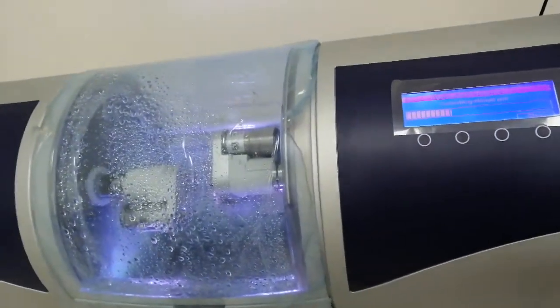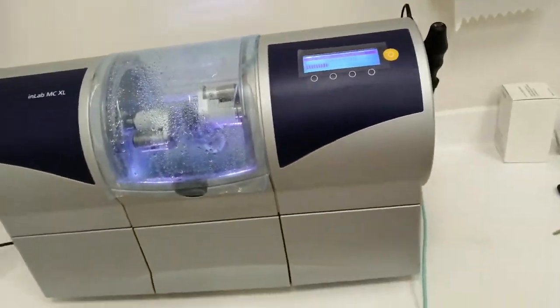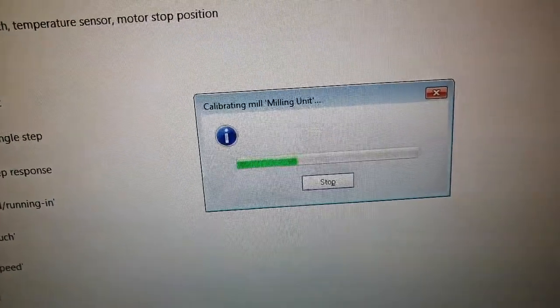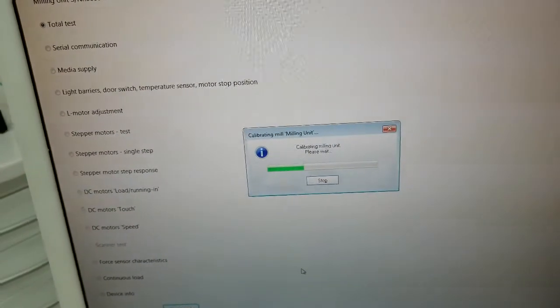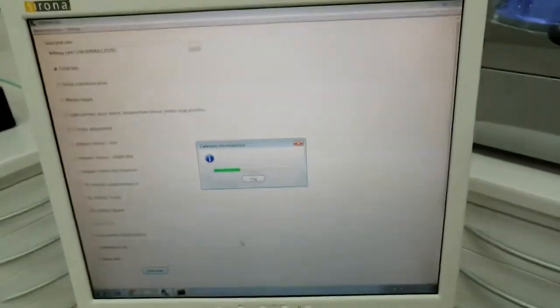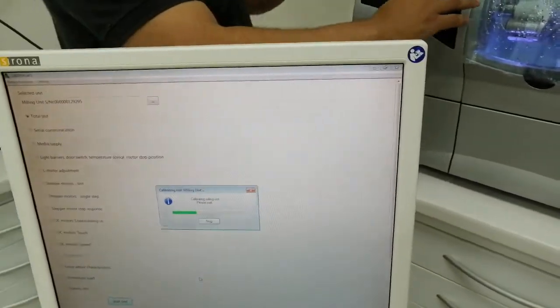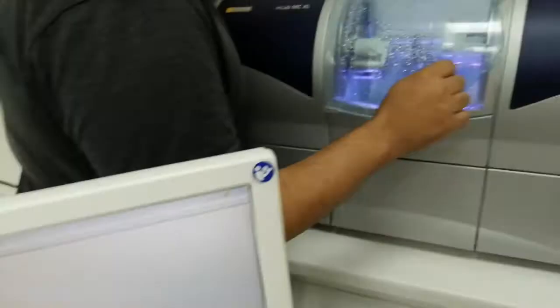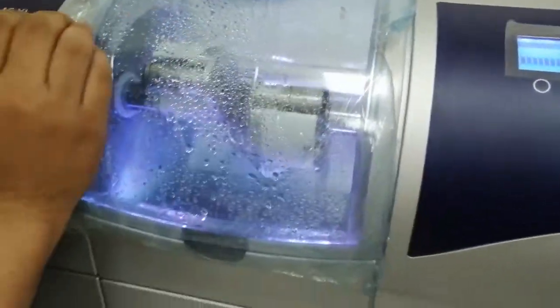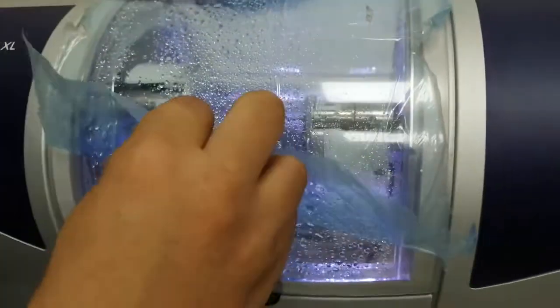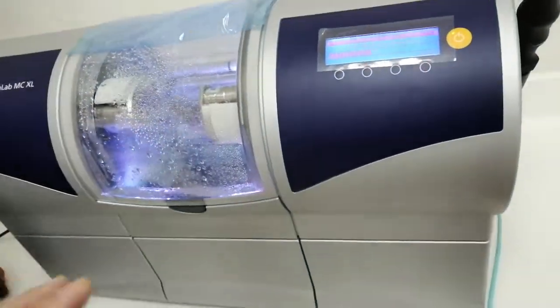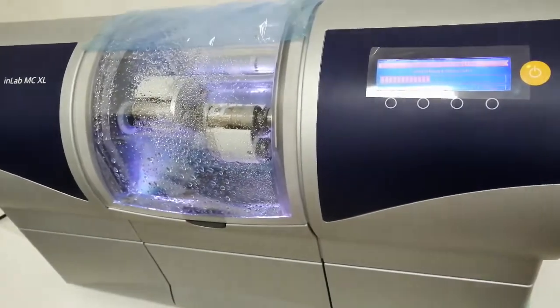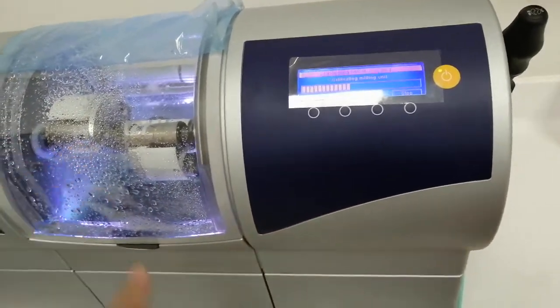This one is good - it's mobile, you can put a camera inside. This is calibrating now. We call it auto-calibration. The calibration of the movement of motors. This calibration tool is positioned in the center.